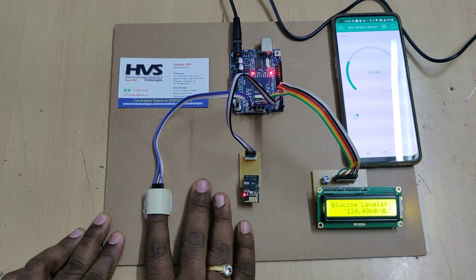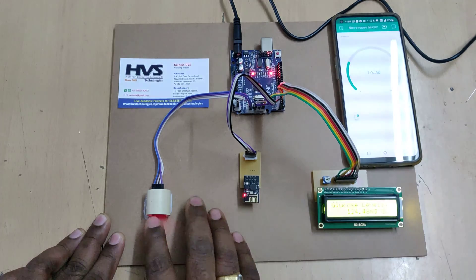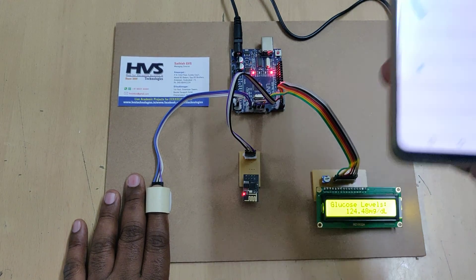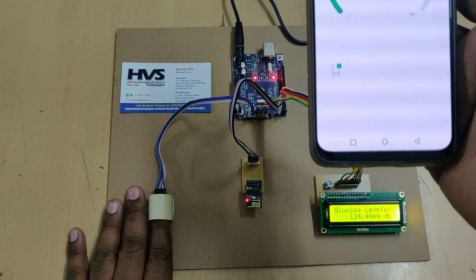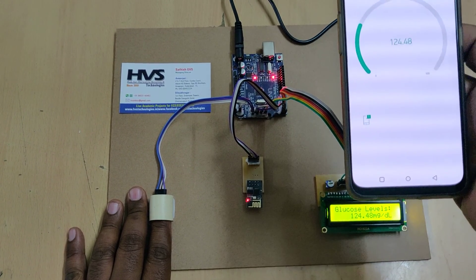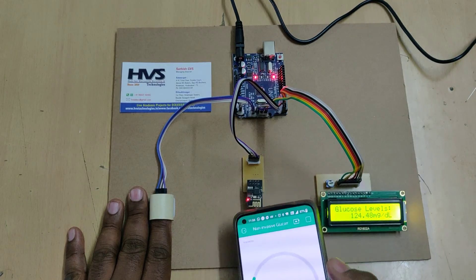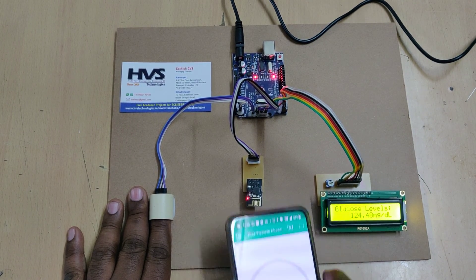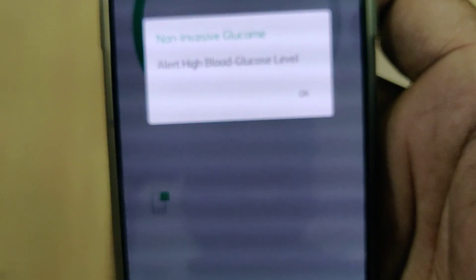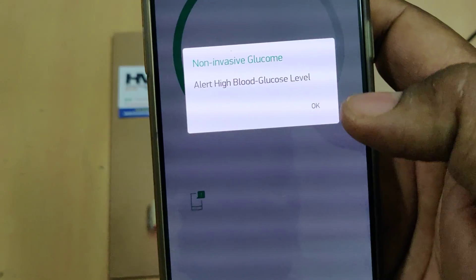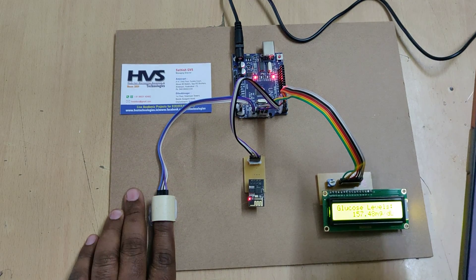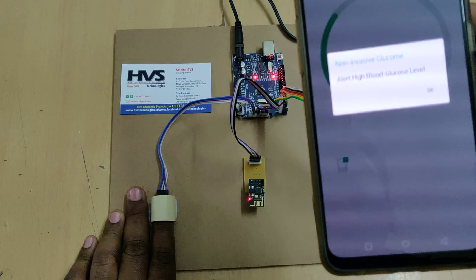I'm trying to trigger a malfunction on the sensor to generate the alerts — it won't happen that easily, but I'm trying. Those who have high glucose levels can test with them and we will get the alert notification in the Blynk application. Once you get the high blood glucose alert, it keeps alerting with the same reading — it locks there — until you insert the finger again.